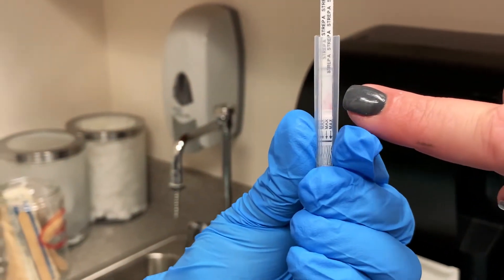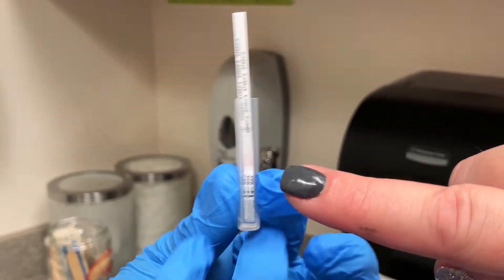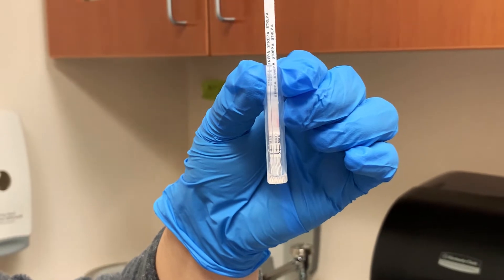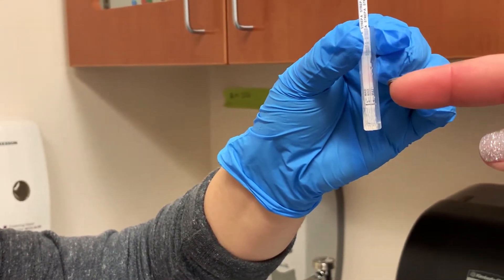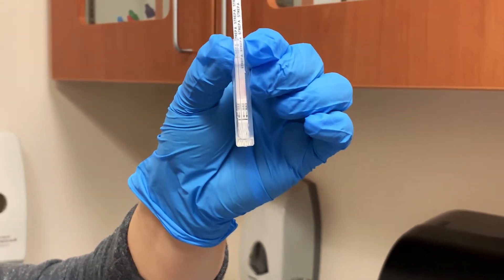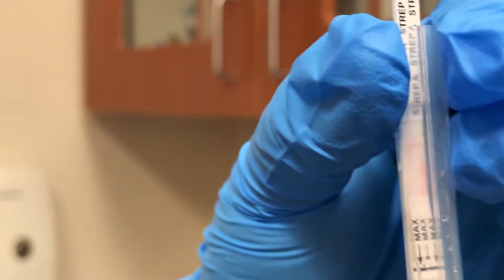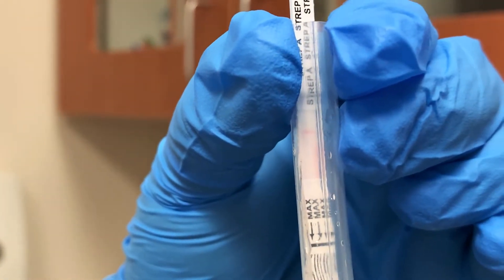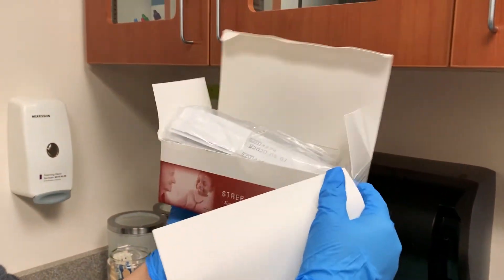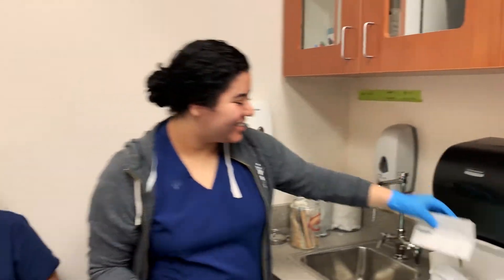So you can kind of see how the pink has started to rise, which is an indicator that the liquid from the strep swab and the control solution has been absorbed up into the dipstick. That means that the test is working. So if you aren't sure if your test strip is working, you can always look to see if it is tinged with pink, because that would be an indicator that the strip is actually in progress with the test. Then you just have to wait for the full five minutes to get the positive or negative results — one line negative, two lines positive. And actually if you look, you can see a faint one line, which means that our dear sweet student has no strep. In the box where the strep test comes in, there are some instructions. So if you have questions, always follow the instructions. And that's it for how to complete a throat culture and a strep test.